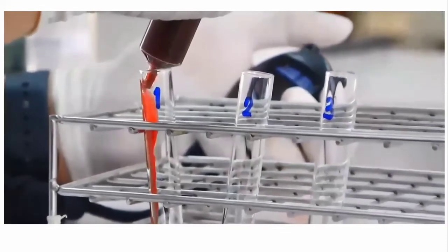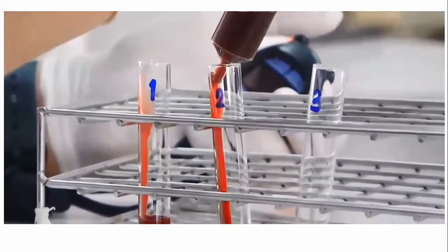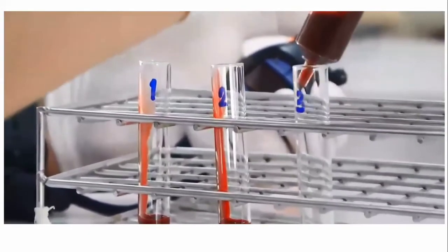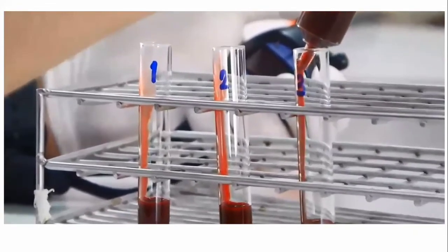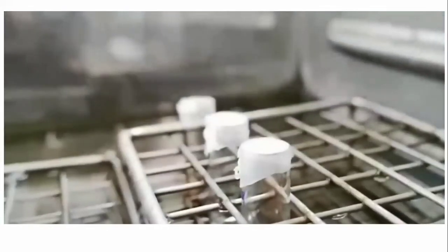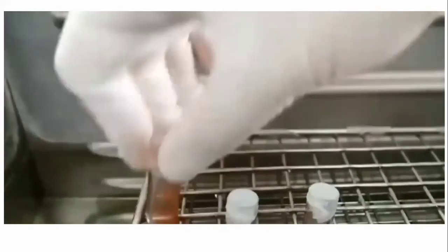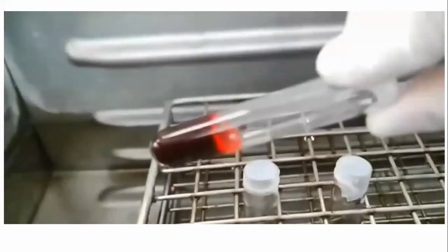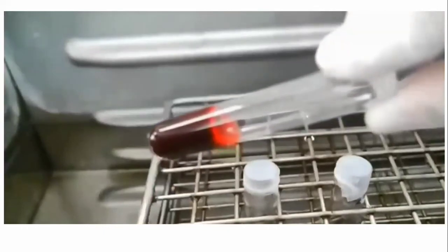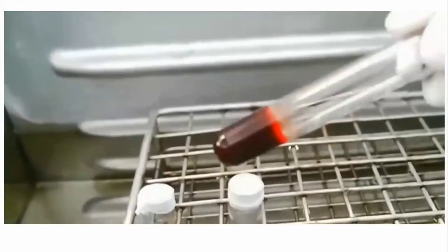The blood is poured into the 3 different test tubes, which are placed in the water bath already set at 37 degrees centigrade to maintain body temperature. The tubes are then checked for clotting after every 30 to 60 seconds by tilting them at 90 degrees. As soon as clot formation is observed, the stopwatch is stopped and the time is noted, indicating the clotting time for that person.